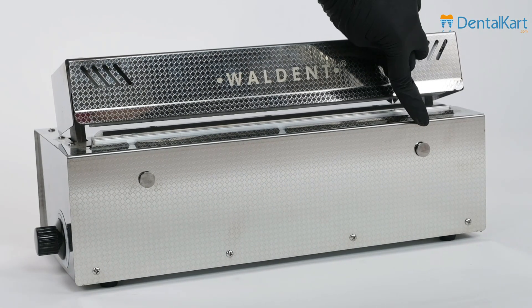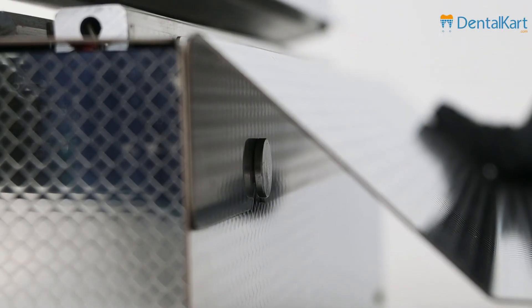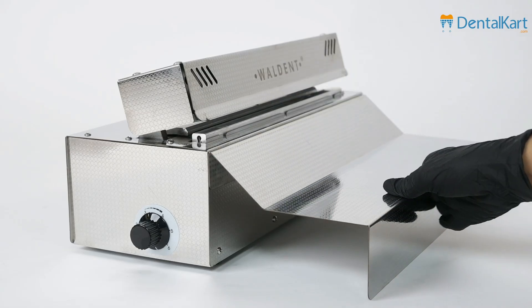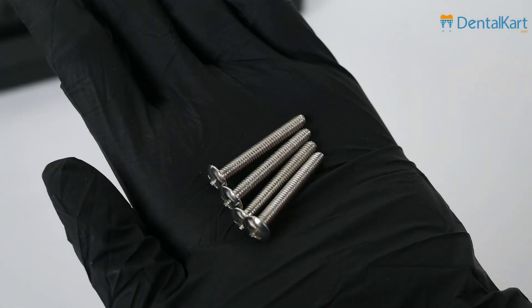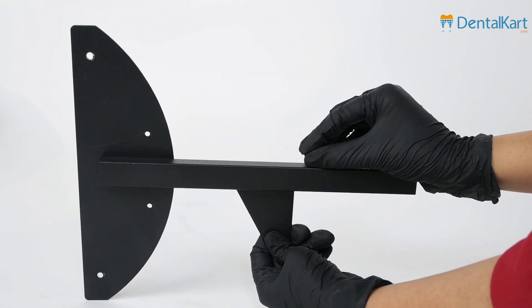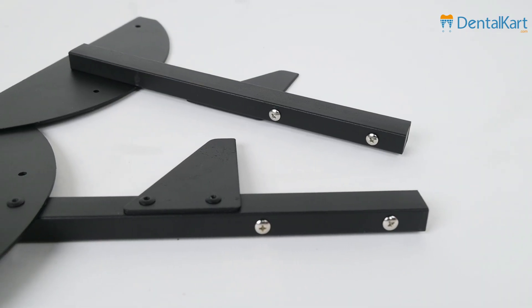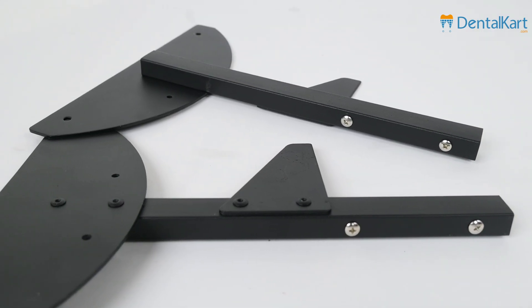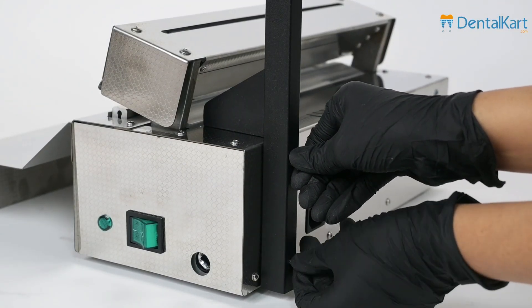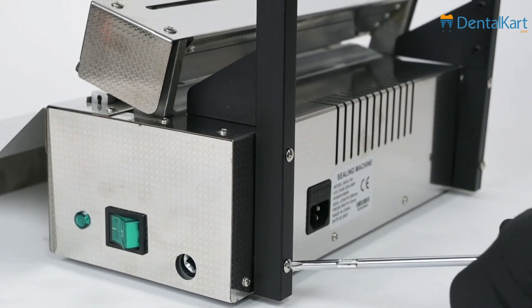This is the mainframe. Attach the platform into the hole and make sure the platform is properly placed. Now get the long screws and place them on the rack. Attach the rack onto the mainframe and start tightening. Use a screwdriver to ensure a proper lock.